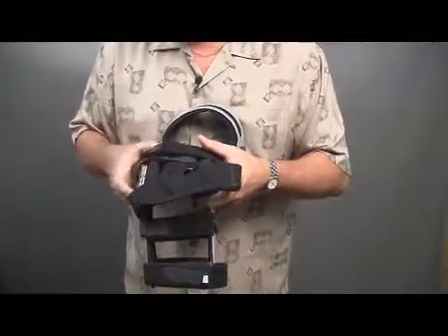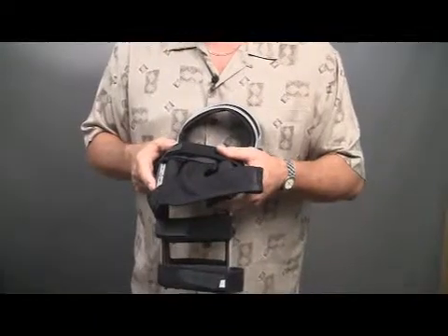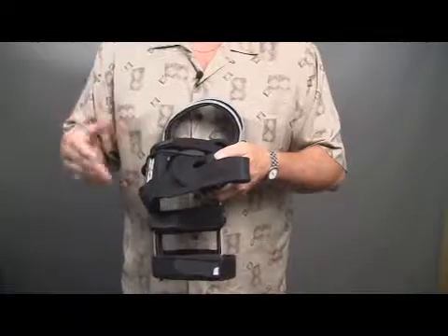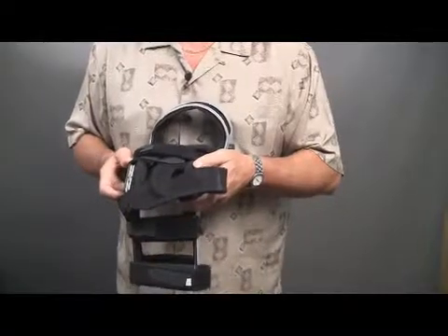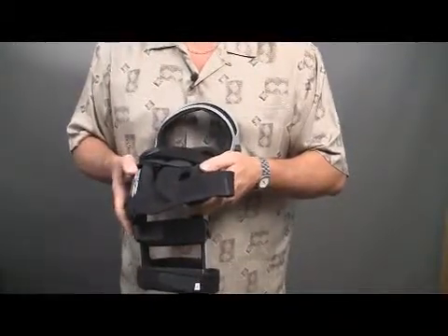If you're seeing your patients and they're coming back in numerous times because of brace migration, you're having to see them — and that's not usually something you can charge for. You're having to treat them time after time. If you put this on initially and it's not migrating, you don't have to worry about seeing that patient back in your facility to treat them again. This has been a very popular item with a lot of our orthotists in their fittings of braces.